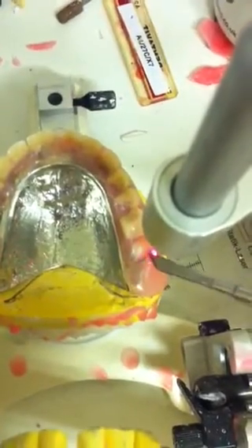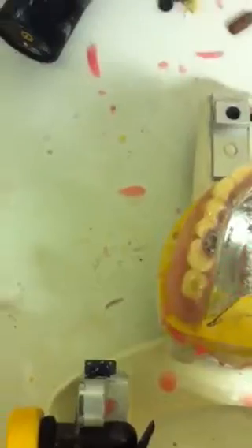So what I'm figuring is, when I'm pushing that, where that's hitting is flexing the denture. So that's creating — and this one, this side, is there. That's not too bad. So basically this is the problem. But the problem is, there's no space. So anyway, what I've done is I've reset this up with a contact point.